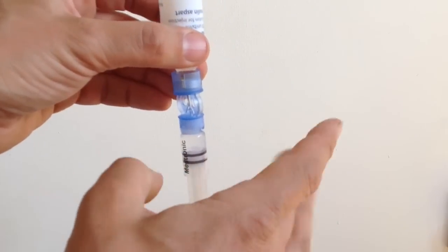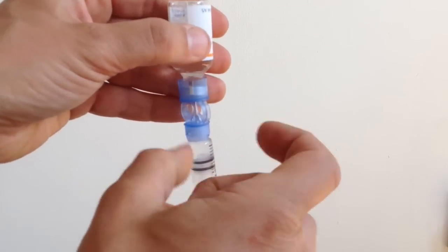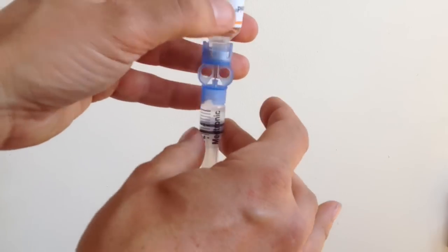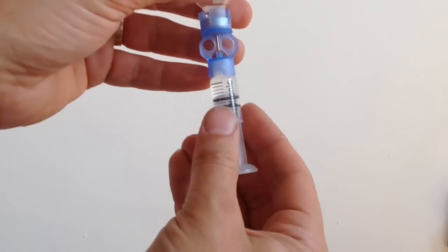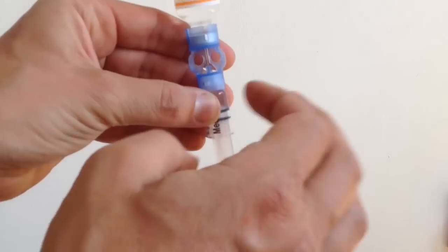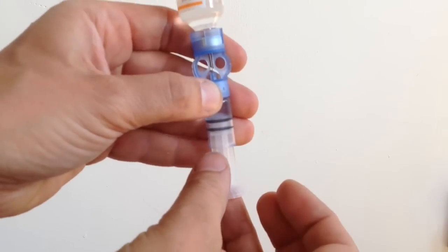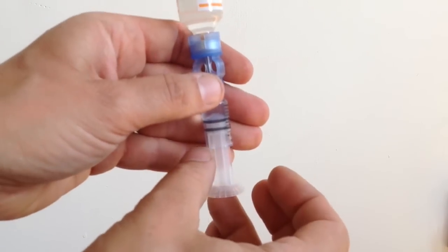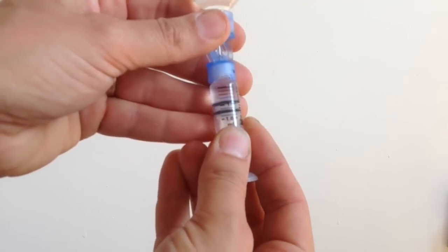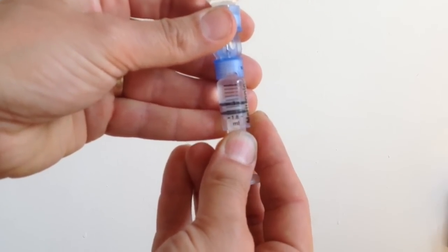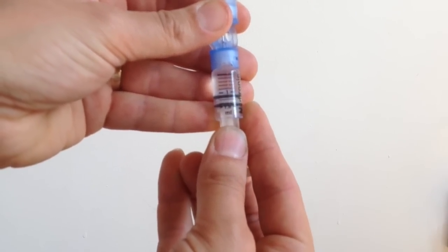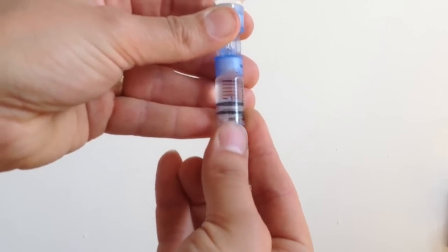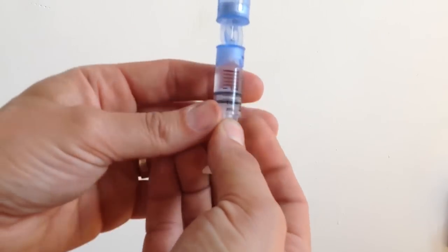So I'm just going to flip the vial on all sides, like that, and then just push a little bit of insulin back in. Tap, tap, tap. Push it back in. And then redraw up to where I want it to be, about 110, 120, something like that.